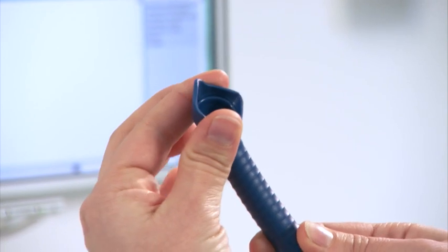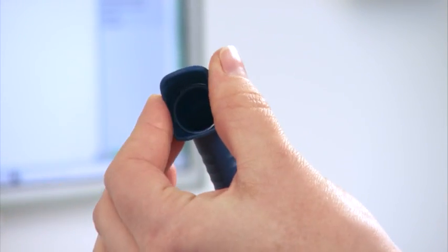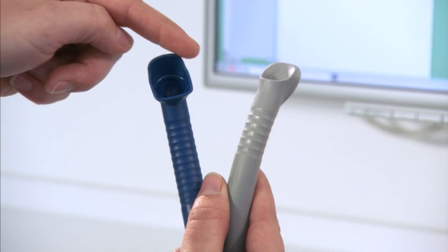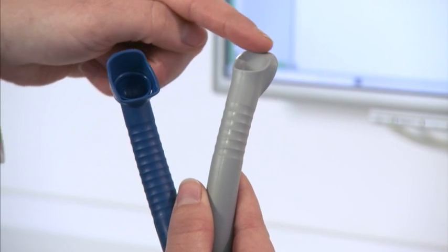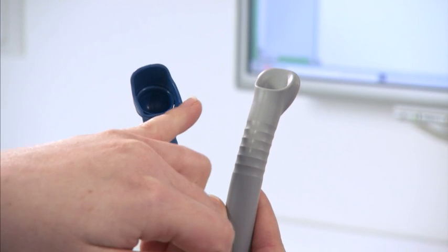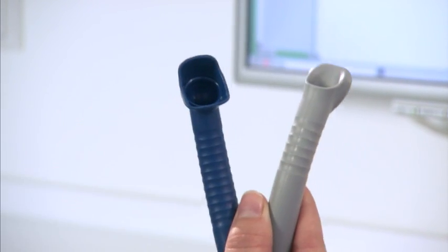The protective shield can be rotated and set as desired. Compared to the Universal cannula, the cannula opening is larger, meaning that twice the aerosol is aspirated. The ergonomically rounded off cannula opening prevents pressure points in patients' mouths.